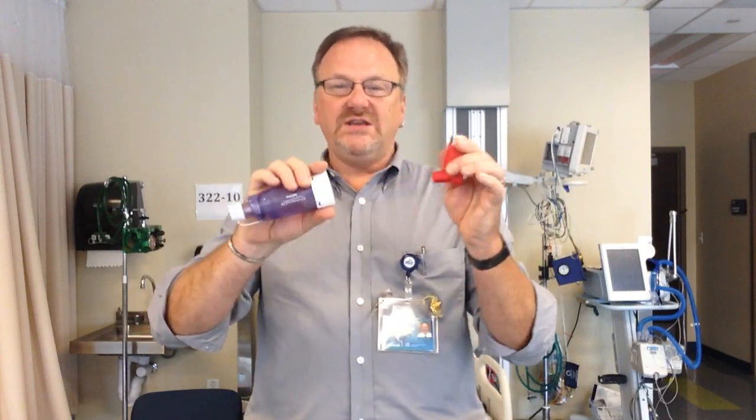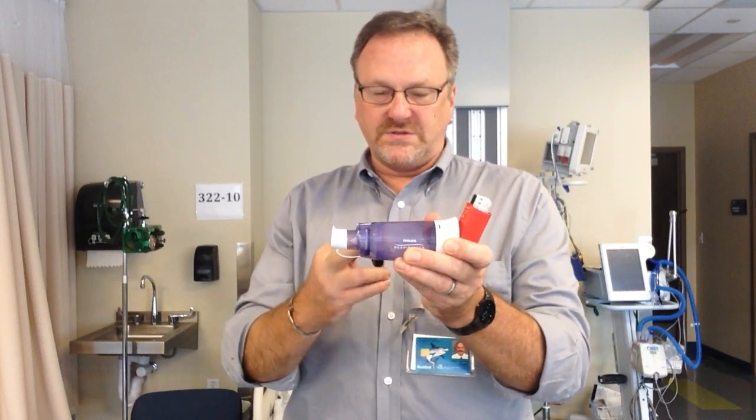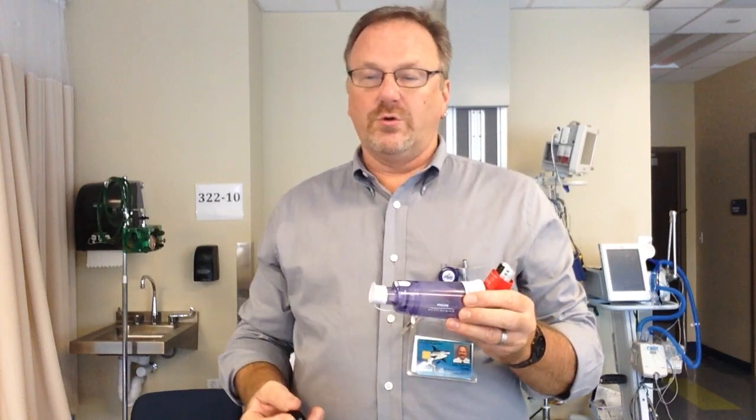So what's the take-home message? A metered dose inhaler is much easier than a small volume nebulizer because it fits in your pocket and you don't need a machine. You blow out, squeeze, puff, suck in, hold for a count of 10, and wait one minute between puffs — no whistle. After you take steroids, rinse and spit out all the medication. The purpose of the spacer is to slow the particles down, allow rain out of larger particles, and decrease the risk of thrush when using inhaled corticosteroids.